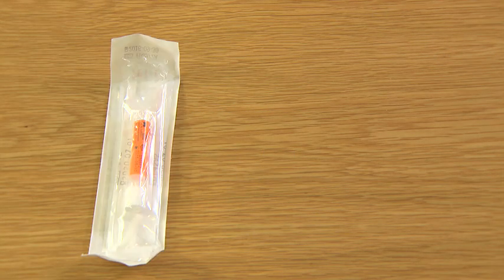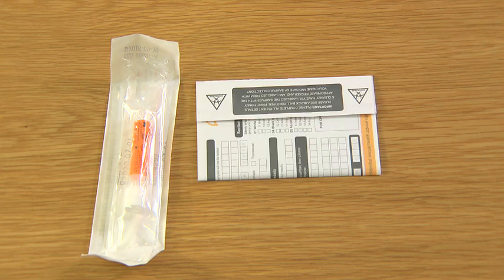To collect the vaginal swab sample you will need the pack that has the thin sample tube with the orange label and cotton bud swab with a pink shaft, the stickers for labelling samples, and a pen.